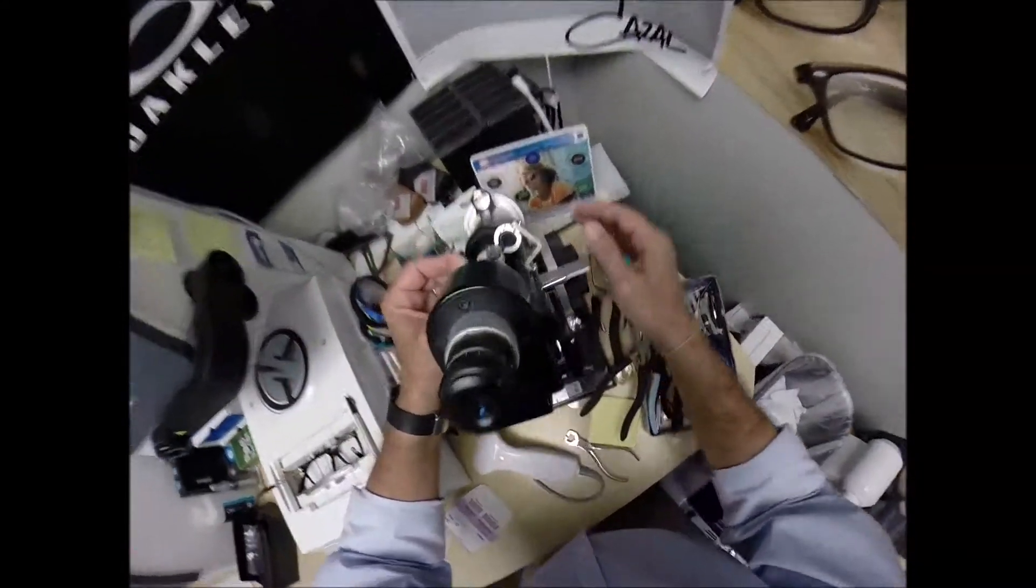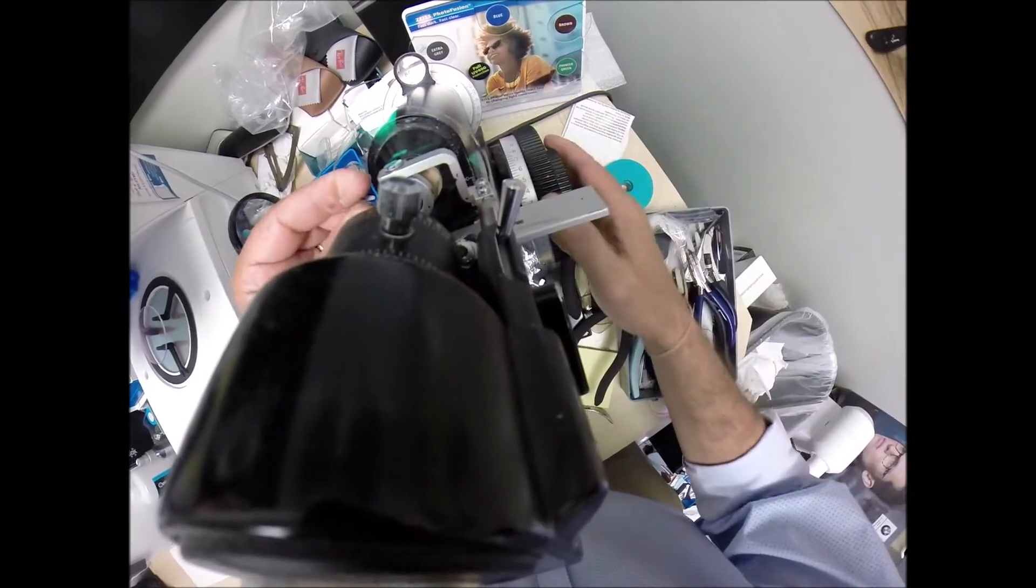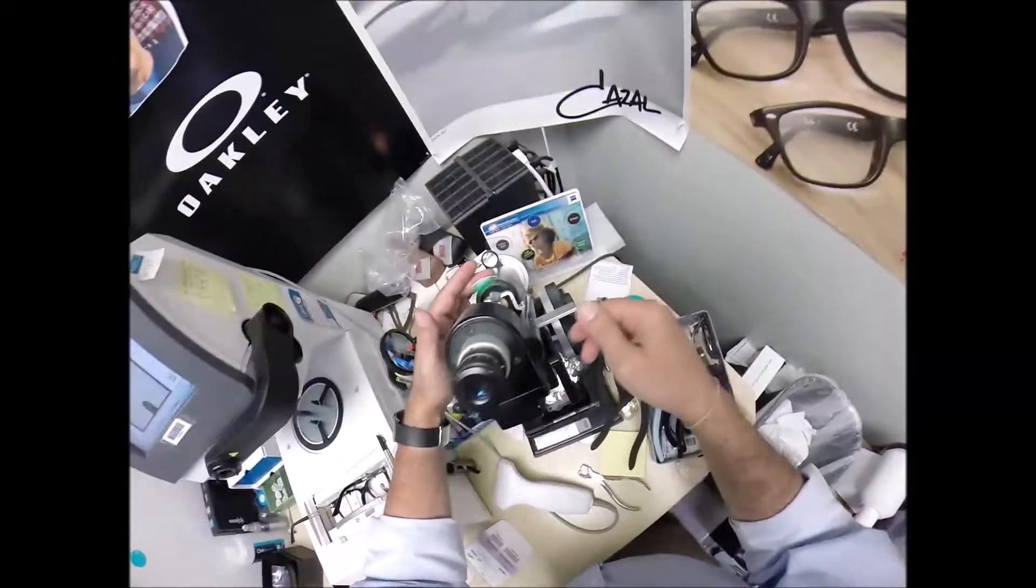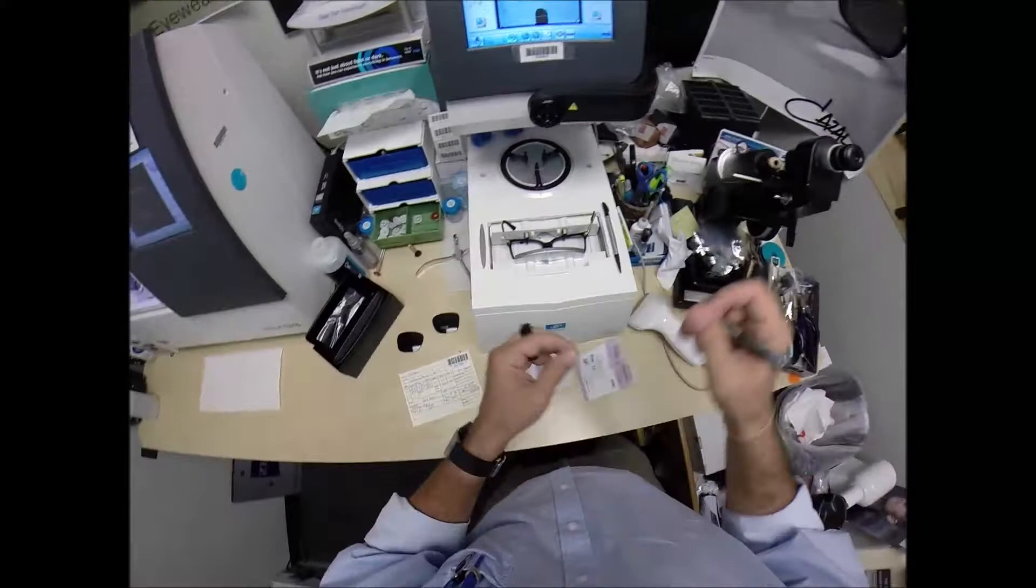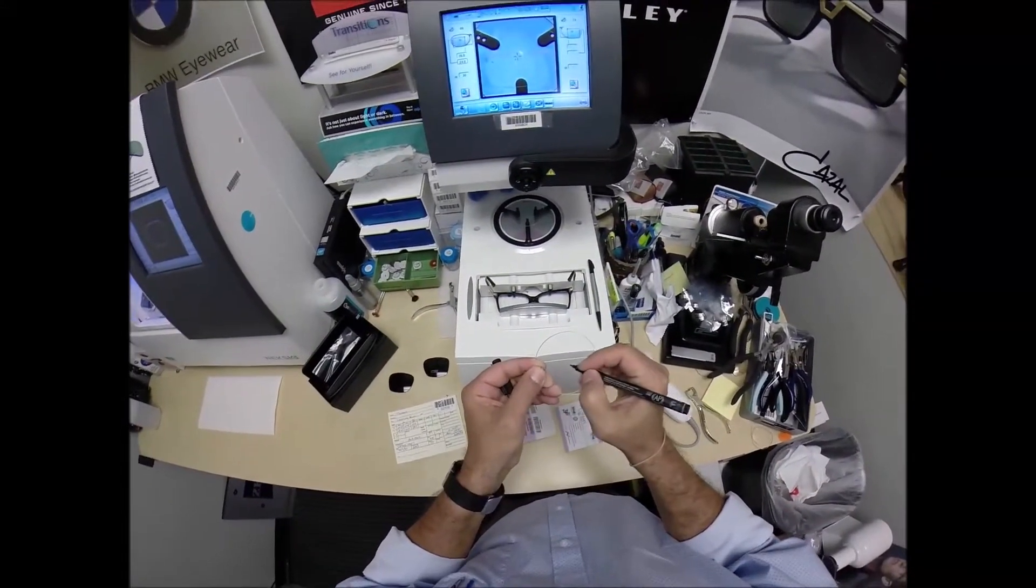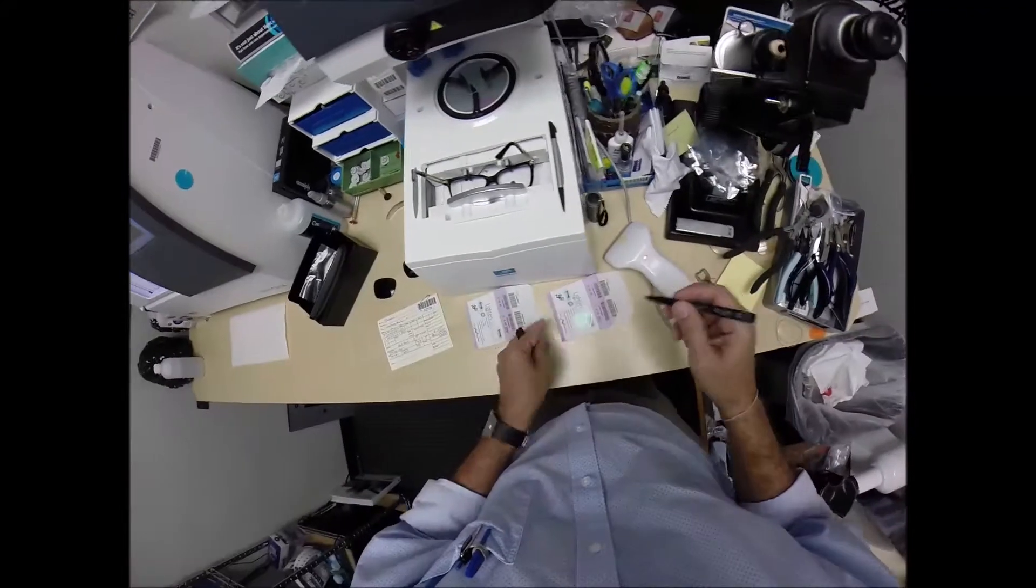What are we at? Oh, plus a quarter still, so I don't have to move anything. Rotate it until the spherical component comes into view. Check the astigmatism correction. Put three dots on there. Darken those so you can follow along at home. And this is the left lens.